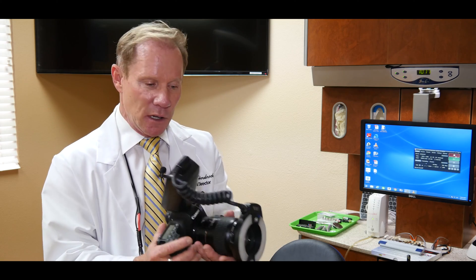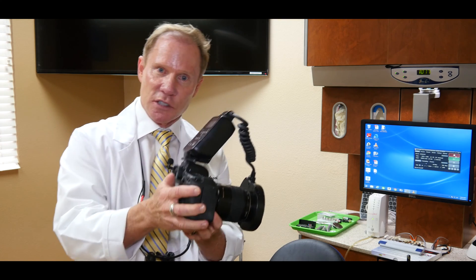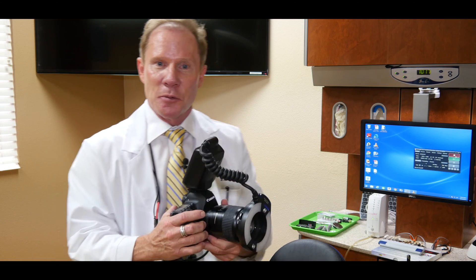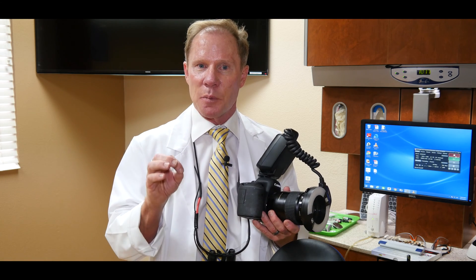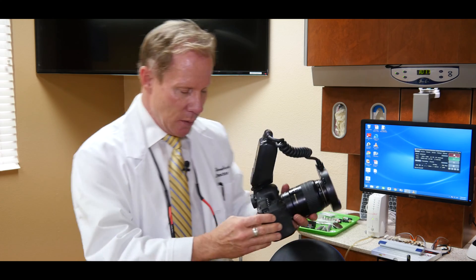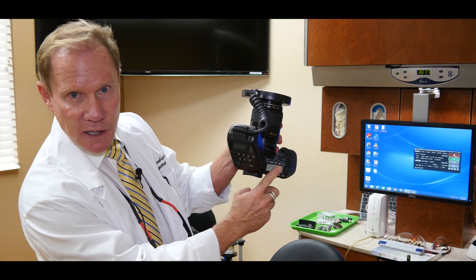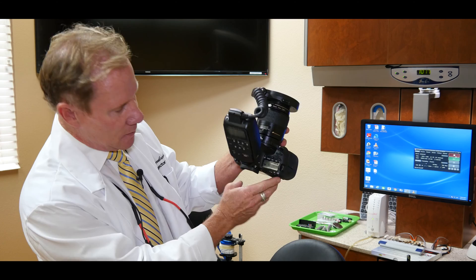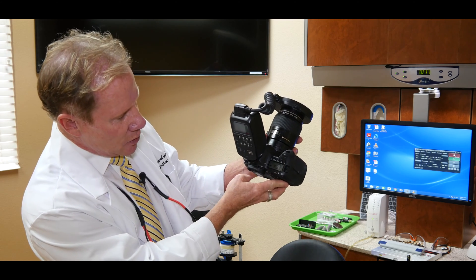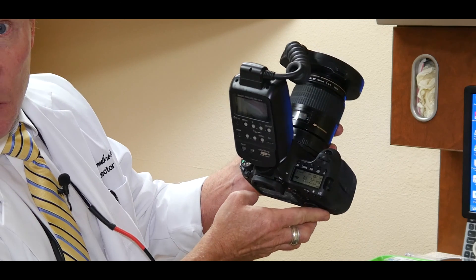The advantage we have with macro photography, a ring flash, and being close to our subject is that we get a lot of light in the photo. So we'd like to have the highest f-stop possible. To change f-stop on the Canon camera, we just rotate this top dial.